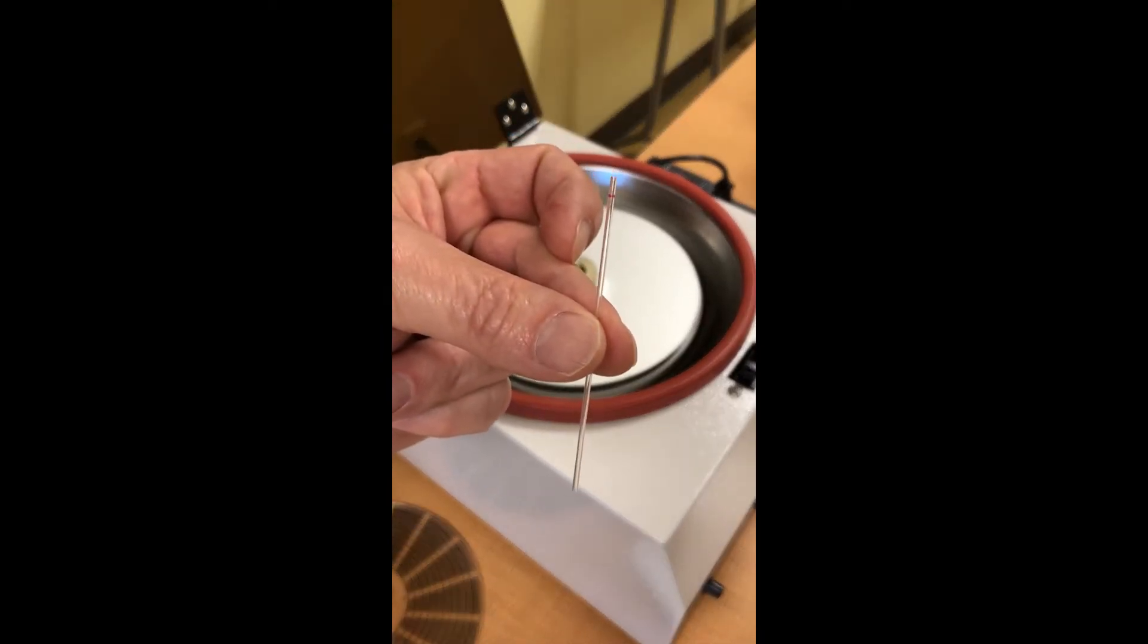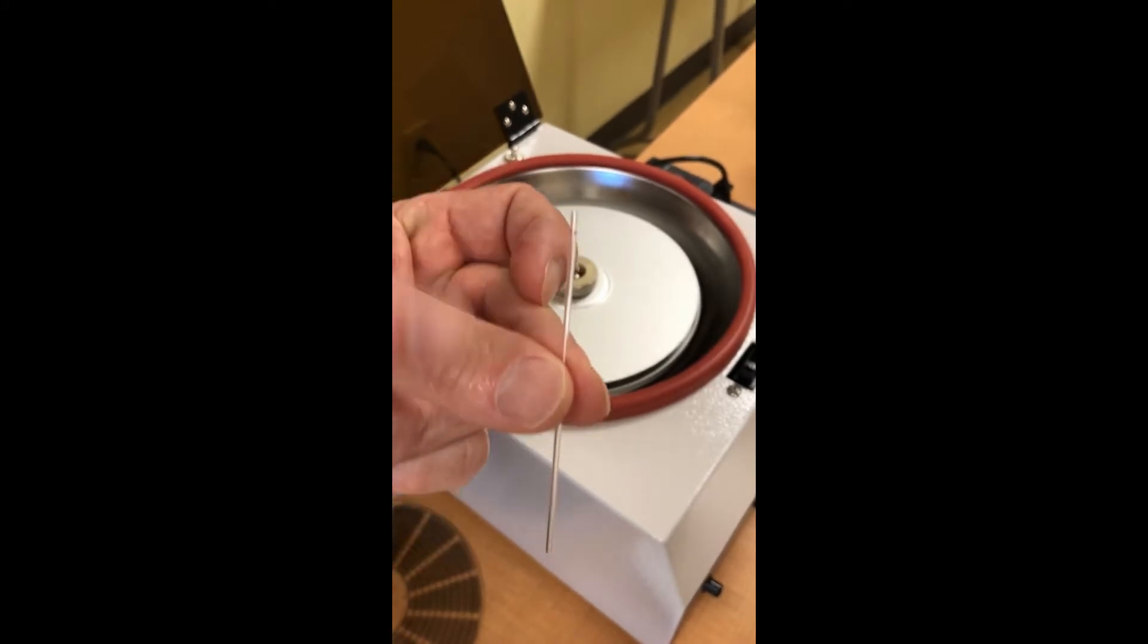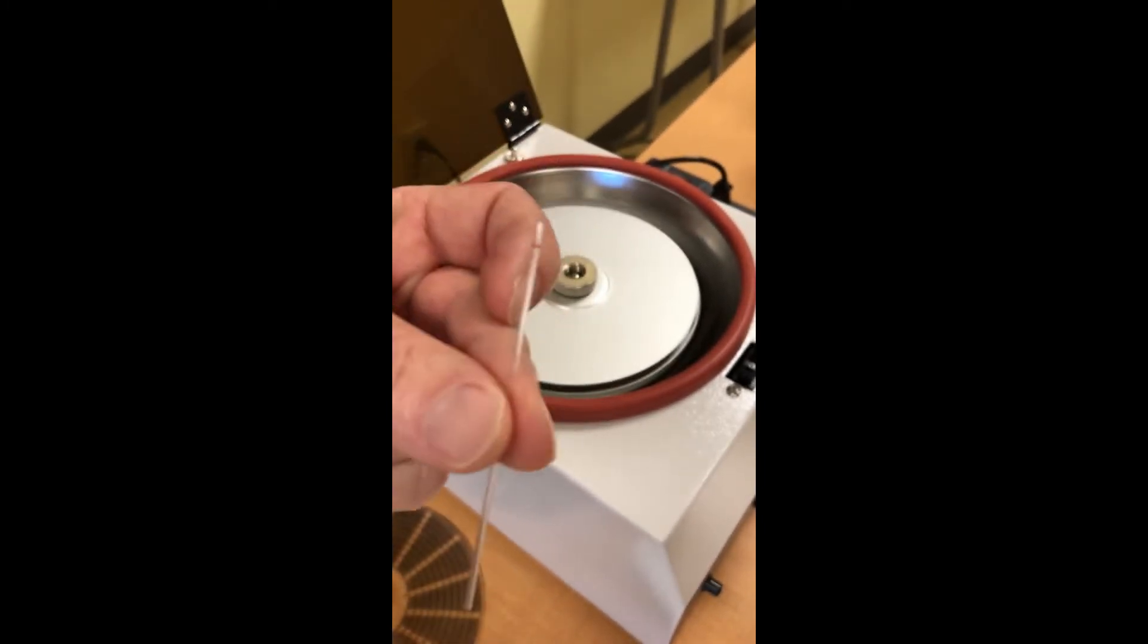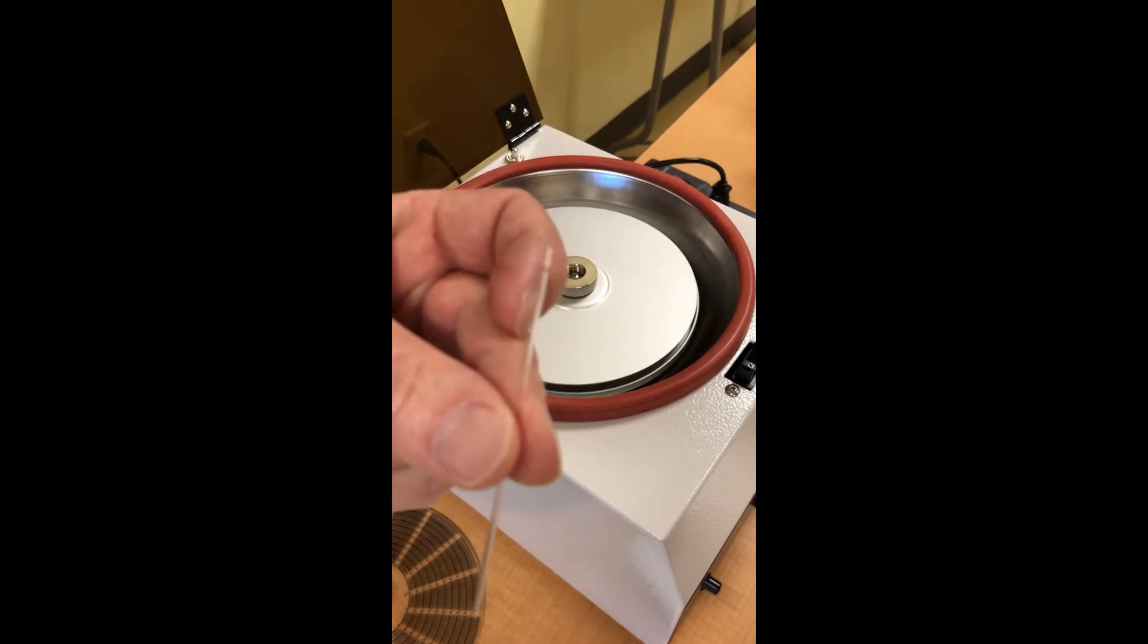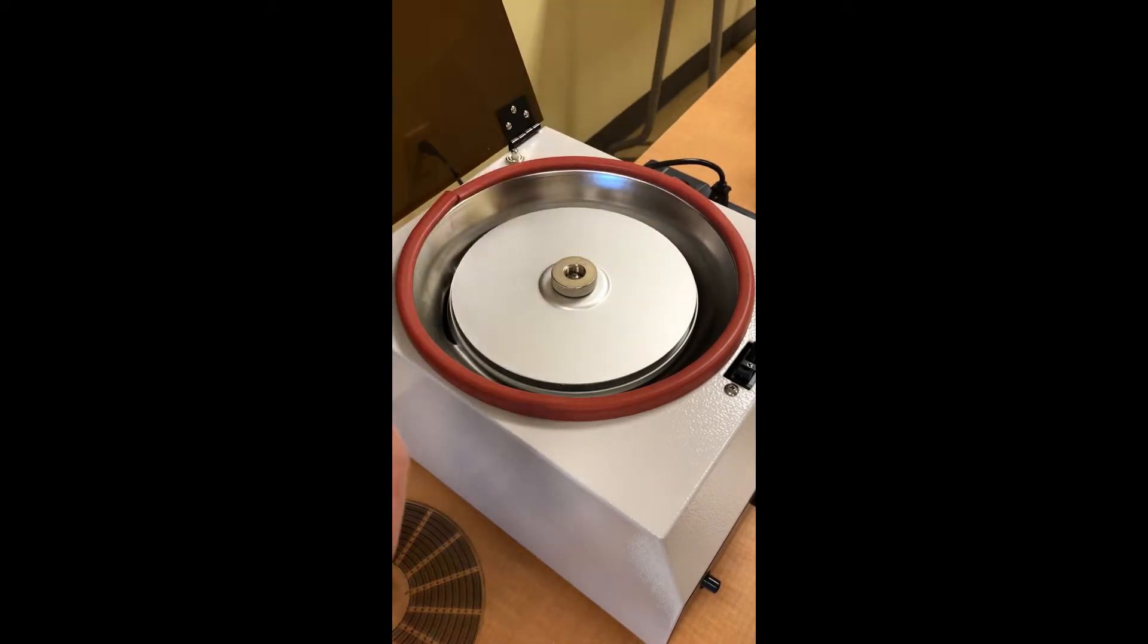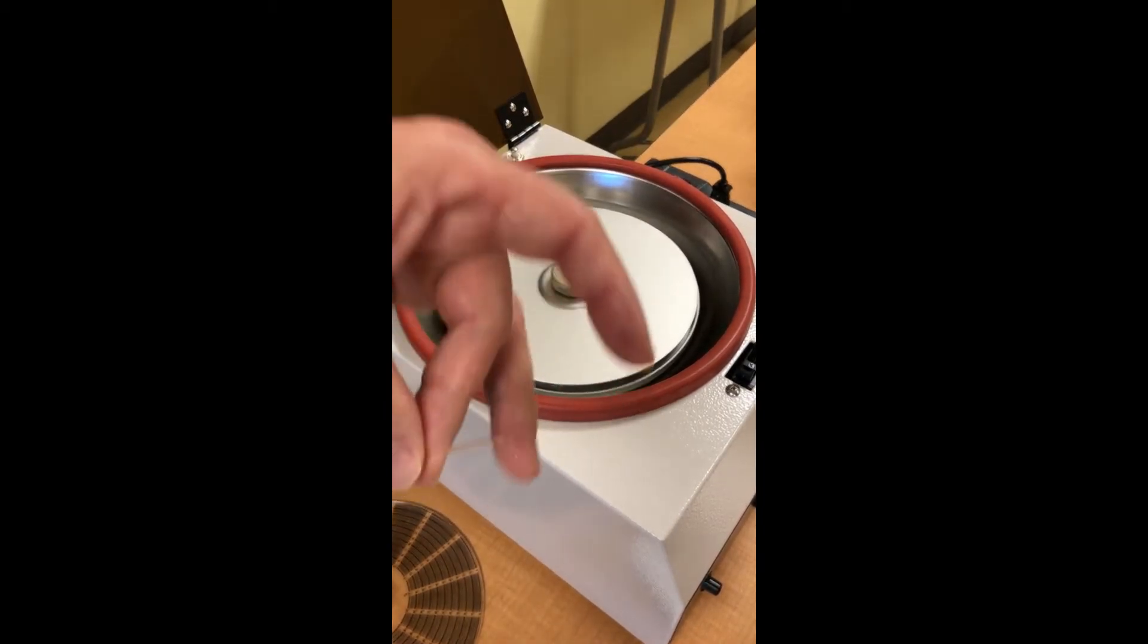So if you want to test somebody's hematocrit, it's really simple. All you need is one of these little glass tubes called a hematocrit tube. It's real small so it doesn't take very much blood to fill it up, and you don't have to fill it all the way. We're going to fill this with blood, then plug the two ends with this little play-dough-like substance.